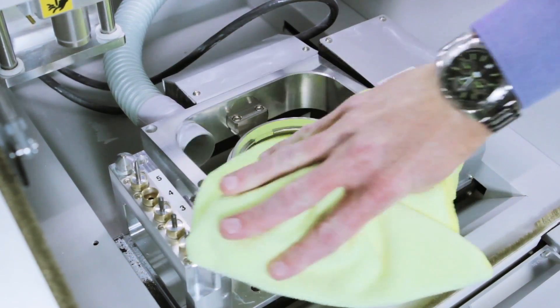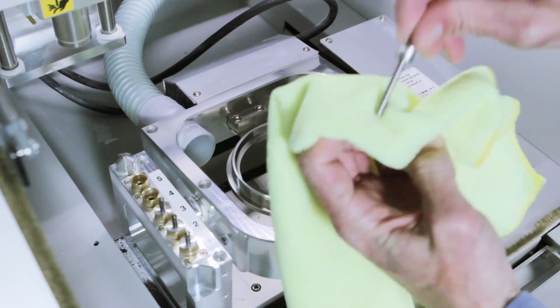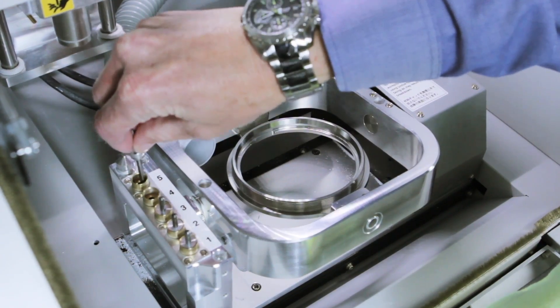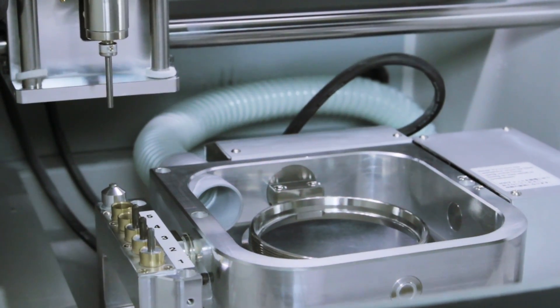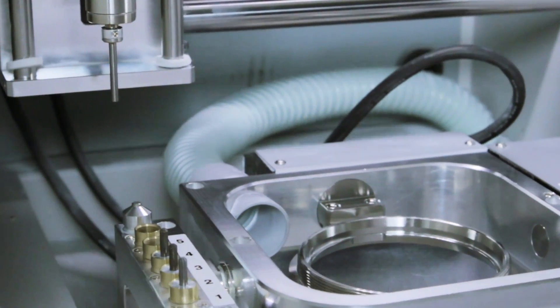Any tiny pieces of material that remain may possibly interfere with the calibration pin during the detection process. The calibration pin is the most important piece of equipment and should be cleaned and always stored in a dry, safe area. Periodically checking the pin for scratches, rust, or damage is recommended. If the pin becomes damaged, please contact your Roland dealer to order a replacement.